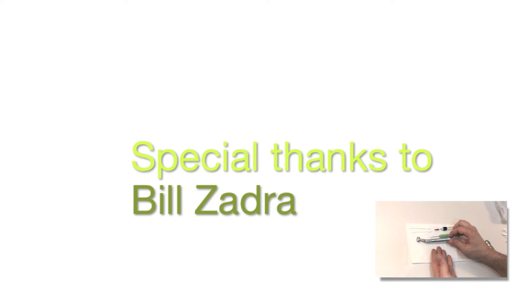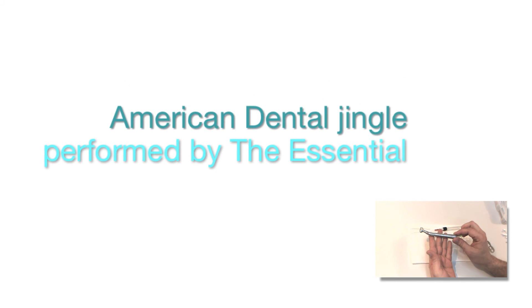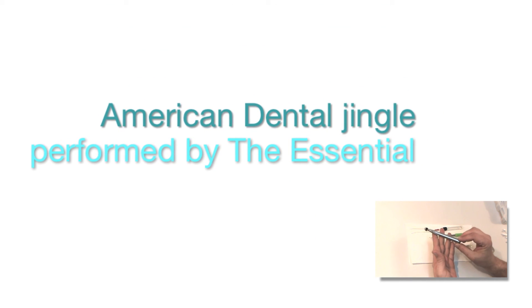And really, that's all there is to it. To see more turbine installations, click the video at the bottom right of the screen.